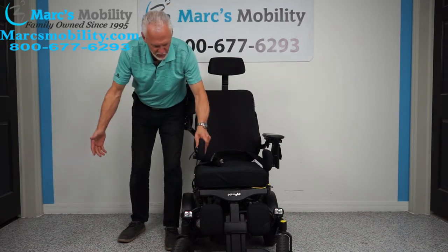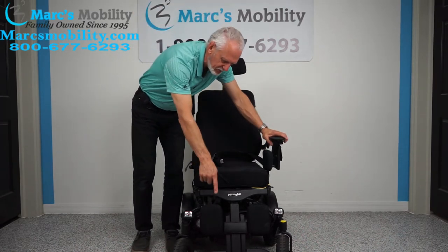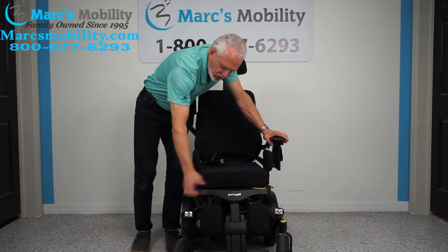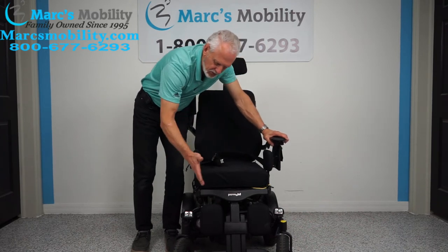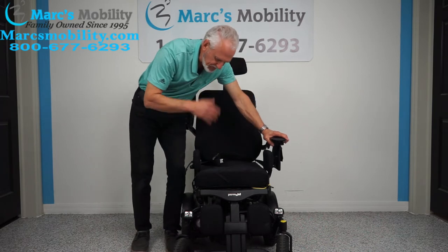These are lateral pads — they keep your knees together and keep your feet on the foot plate. With these, your feet will not come off the foot plate, and your knees won't get sideways and hit a door when you go through one. These are really nice.